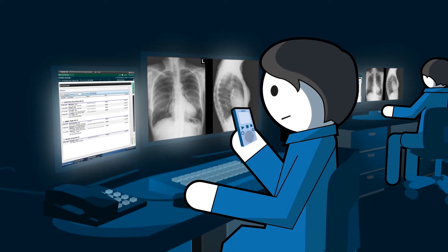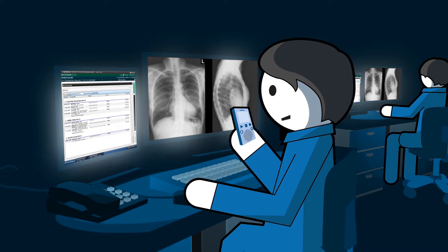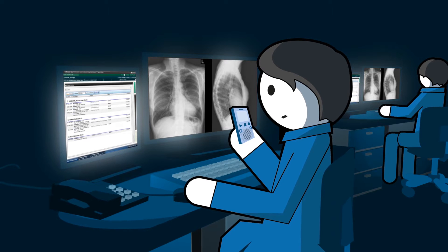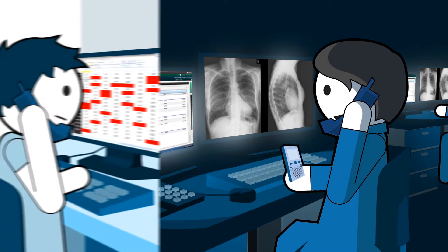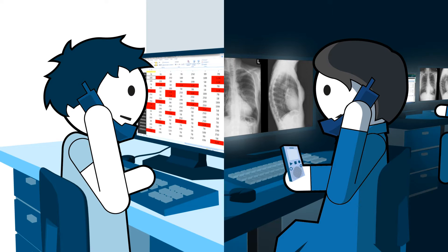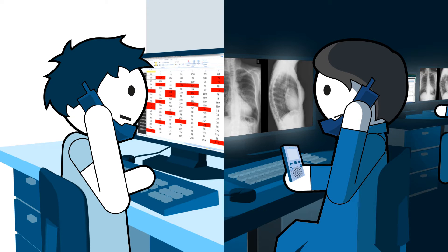In today's healthcare system, radiologists rely on their medical displays to make critical diagnostic decisions. That's where you, as a PACS or IT Quality Assurance expert, play a key role.